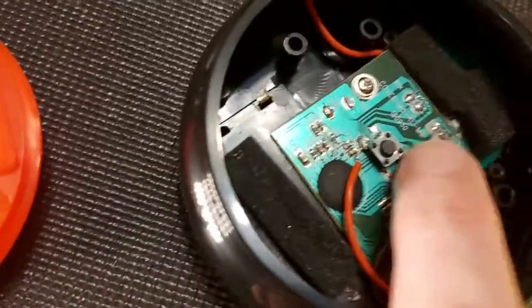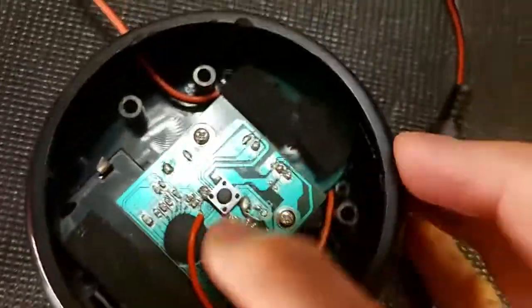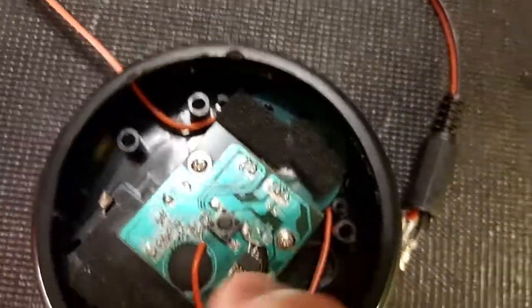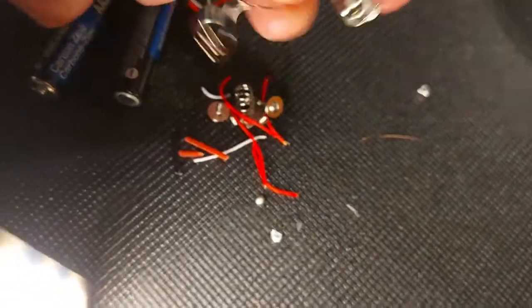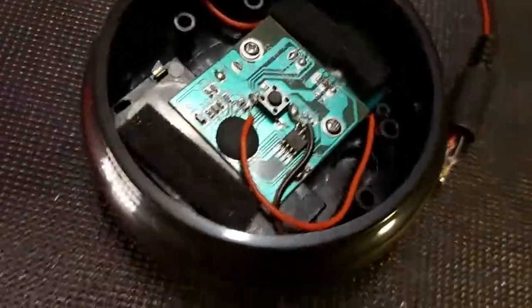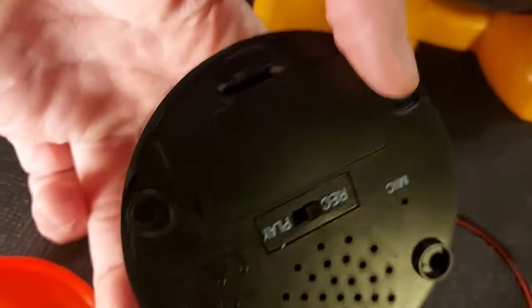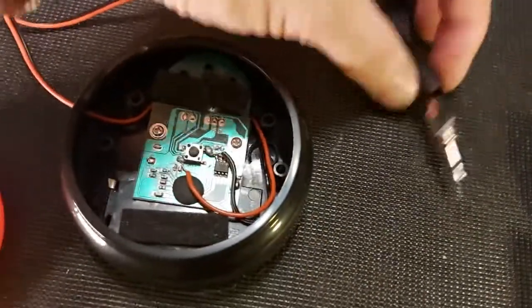All the switch plate is doing is pushing down on that assembly, and then this piece pushes down on the tack switch in the center. What I've done is gone through and snipped out everything in here — taken out as much as possible, including a microphone and other pieces. I wanted to get rid of as much as possible so there's nothing in here that could short out or that someone could get into. I'd probably glue this battery panel shut as well. It's obviously still a switch that needs to be supervised because of the small parts.